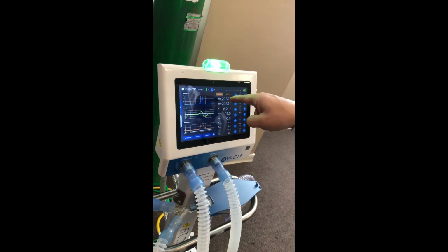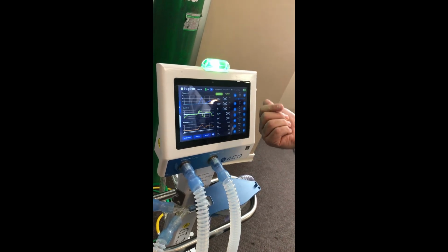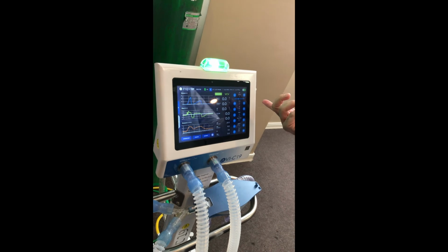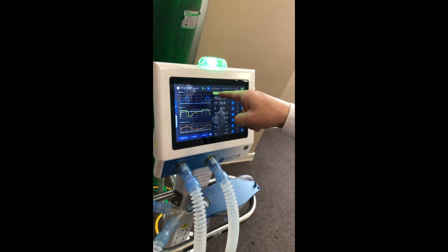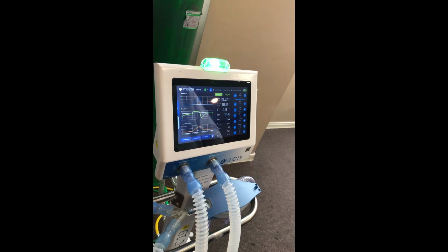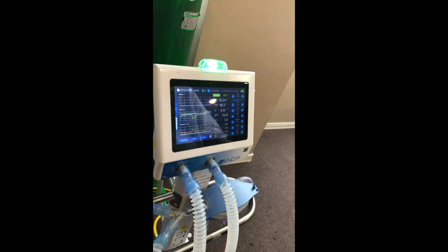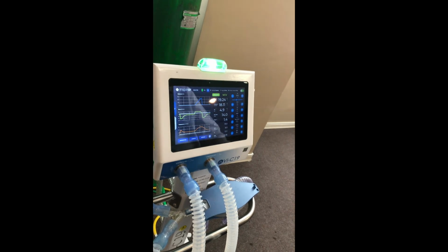Only when you hit this button does it really turn to VCV or the other mode you choose. If you do not hit this button, it will go back to the previous one. Also, when we change some parameters, the equipment will calculate the RC.